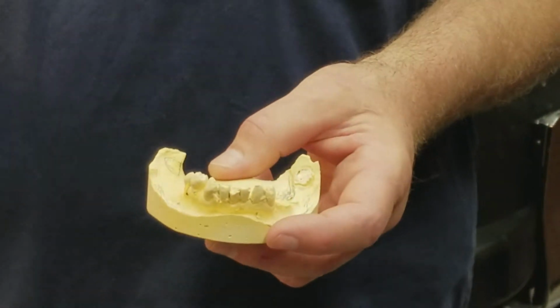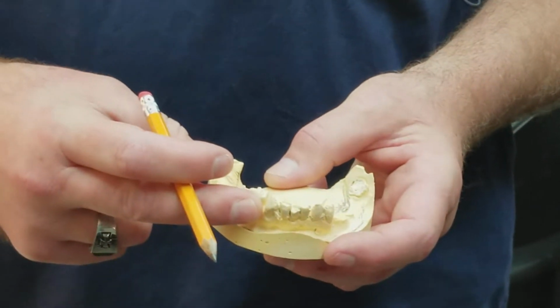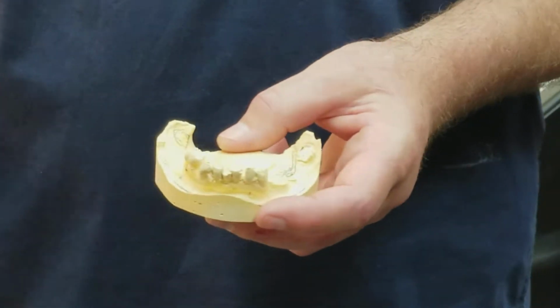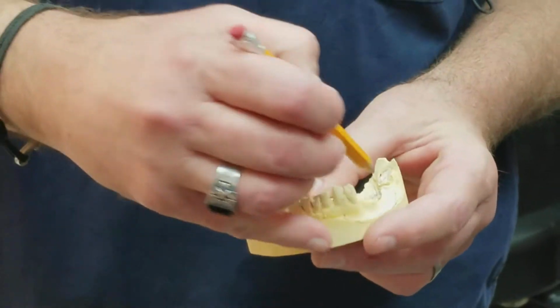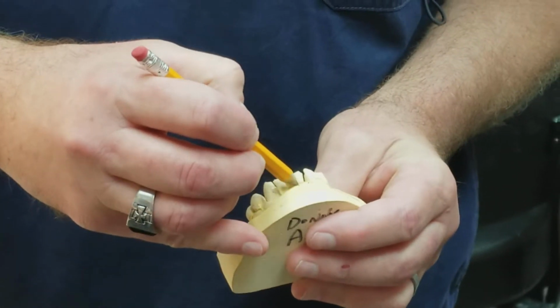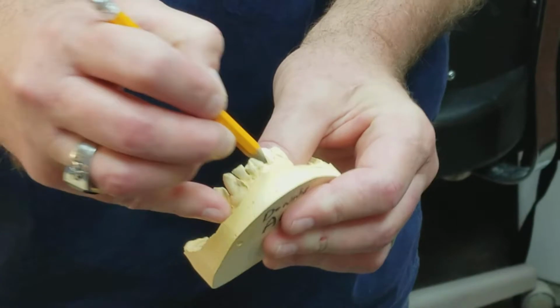See, it's just like having a broken arm. When they reset it, they put it in a cast. Well, if we take an impression on the patient, we want to make sure that cast is right, and then we don't have to redo it later. See, so that's very important. So you'll have your buccal attachments, and then your labial frenum attachment. You can see it; it's vague, but you can see it's right down in that area. If you can all see it there.